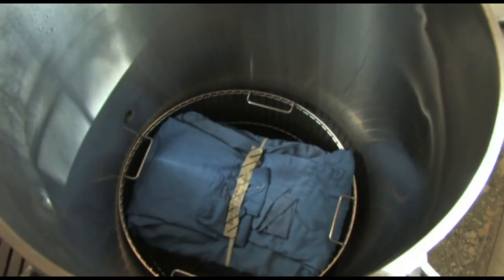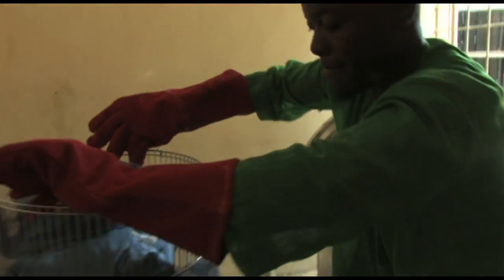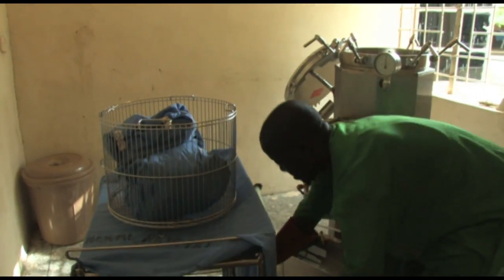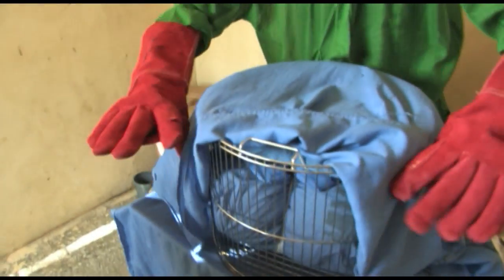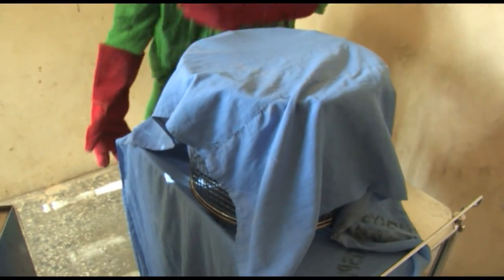Once the lid is opened, wait for a minute or so before taking out the load. Then take the items out and transfer them to a transporting trolley or shelf. Allow ventilation and cooling down before storing.